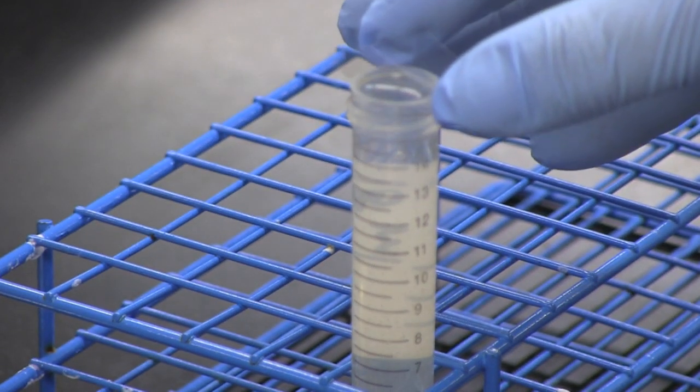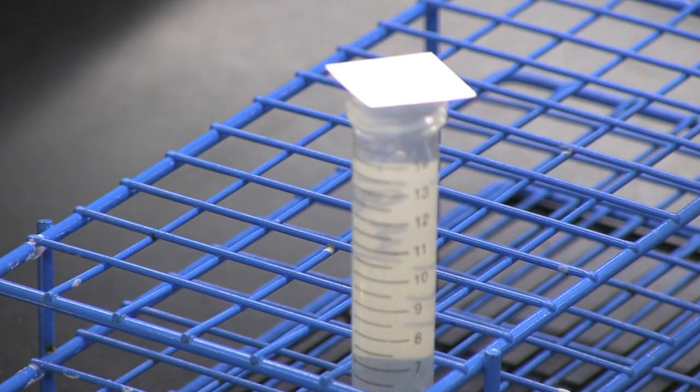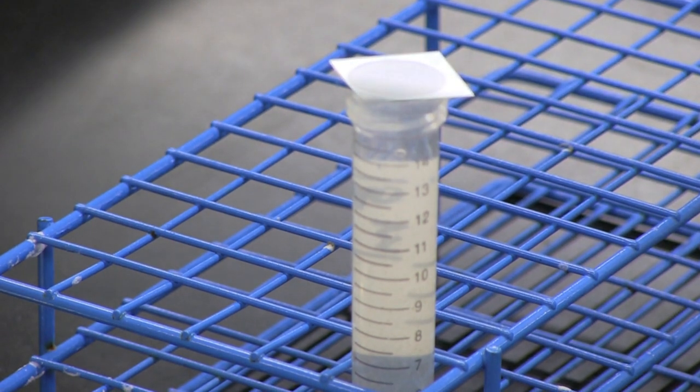Next, put a cover slip on top of the tube filled with solution. The cover slip has to contact the solution surface completely. During this step, the solution may spill a bit. Let the cover slip sit for 10 to 20 minutes. During this time, the eggs will rise to the top and stick to the glass.